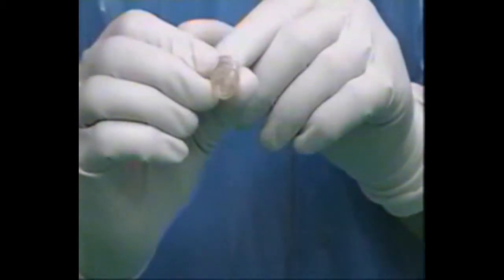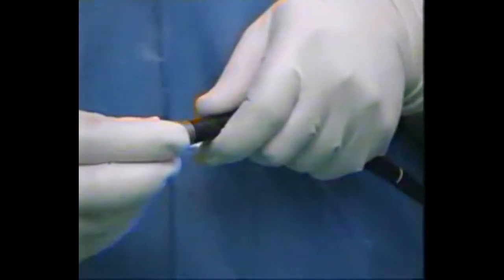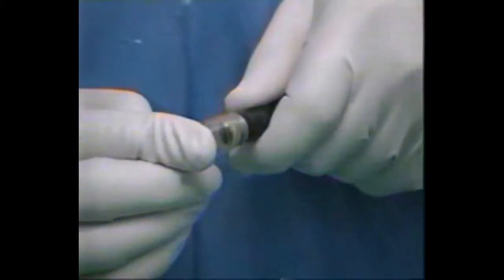The plastic cylinder, which is provided with a groove at its outer end, is fixed into the distal end of the endoscope.